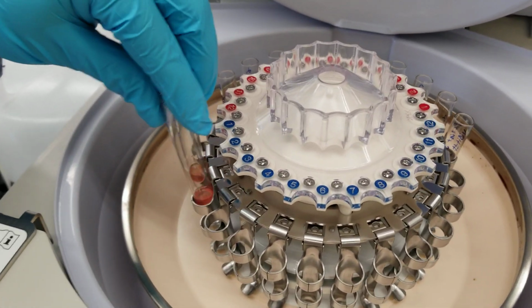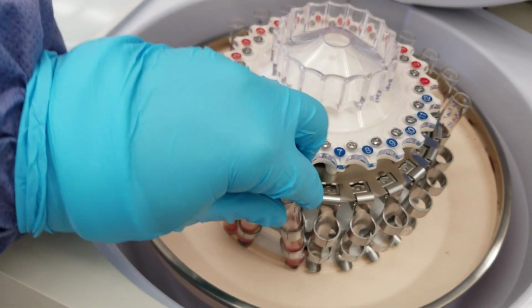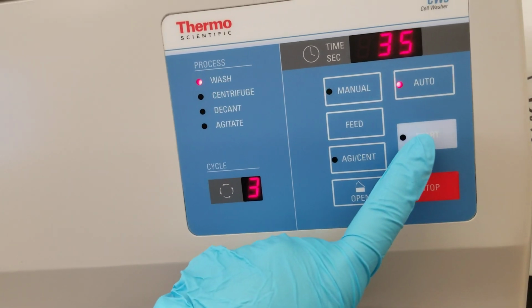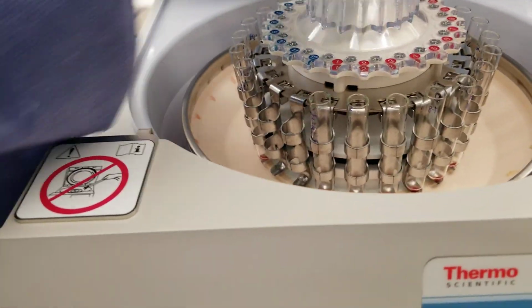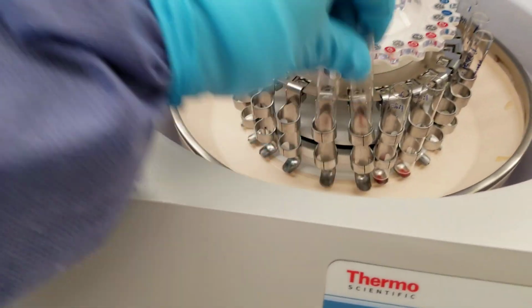Now we're doing visit number 1. We have a 24 tube rotor. Okay, so we have 2 missing here and 2 missing there. It swirls fine. We're gonna go ahead and do the wash, so that means we're gonna hit start. And you've seen this before, so I'll get back to you. All right, so we're gonna go back and pick up these washed cells. We're going to put them in our rack first, and then we will put them into the centrifuge, read them again, and talk about what's going on.